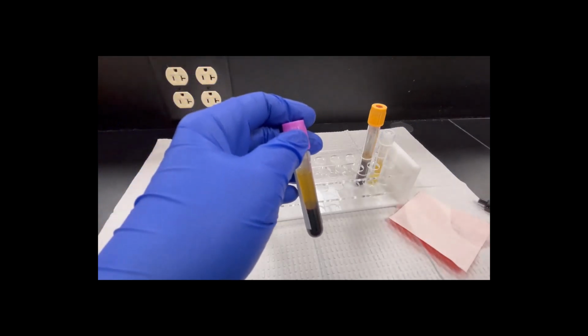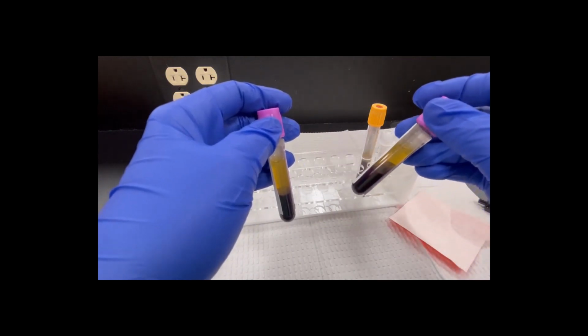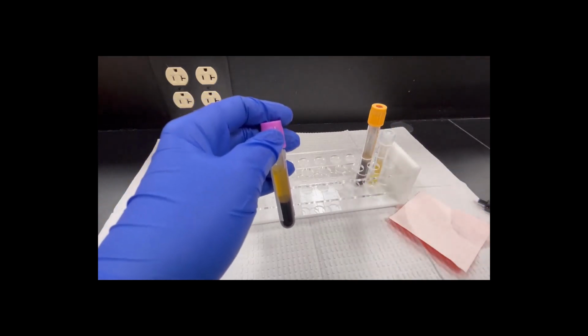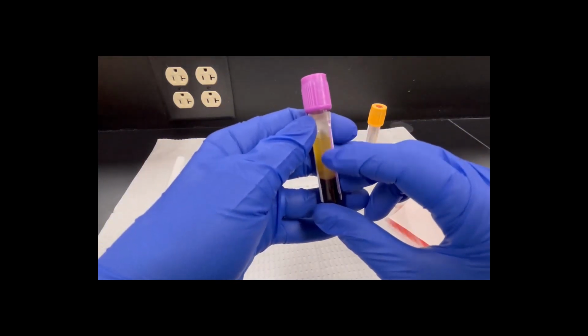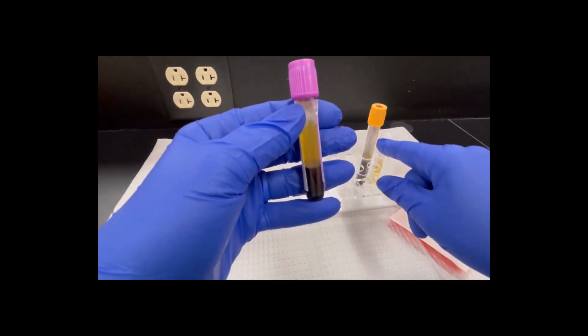Let me show you an example. I've got an extra tube here, and you can see when you put it on its side that the cells, oh, see how they get all mixed up in there? And once they get mixed up, there's nothing I can do. So this is not clotted. Because this is not clotted, all the clotting factors are still up here in this plasma. This is considered plasma. When you don't clot, it's plasma. When you let it clot, it's serum.